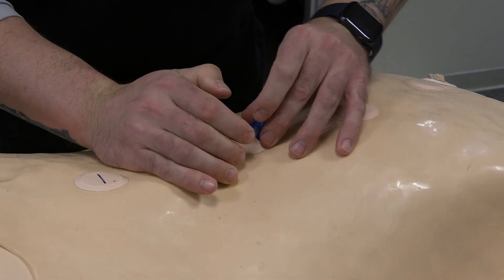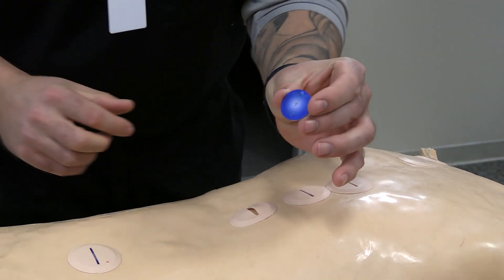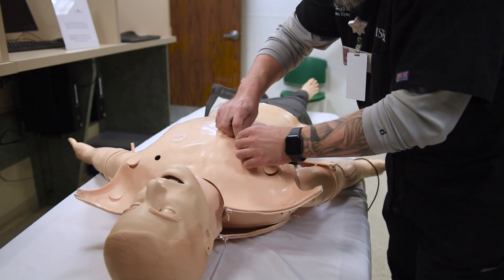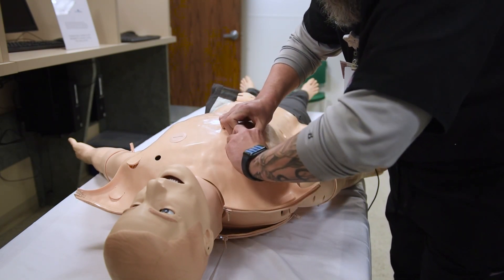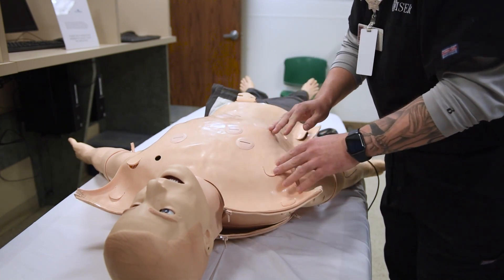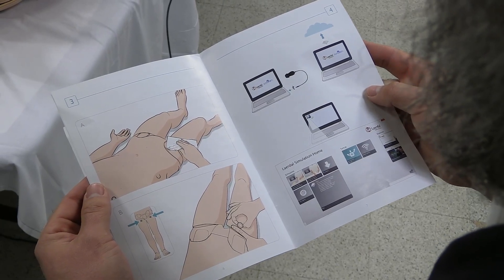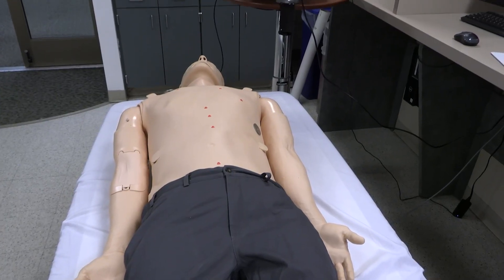Using LS tags, or Laerdal Sonosim tags — small chips seen here — inserted into specified areas throughout the chest skin, you can integrate specific ultrasound imagery to align with a particular scenario you're running. With one singular probe that connects to the laptop via USB, you can scan these areas and have the learner identify and diagnose their findings.